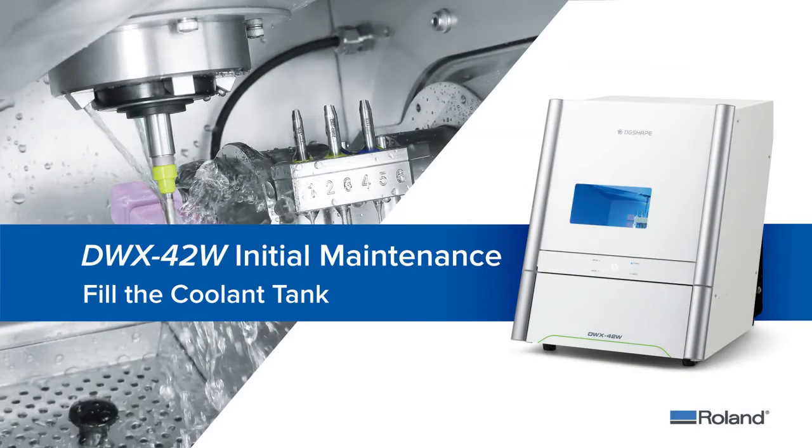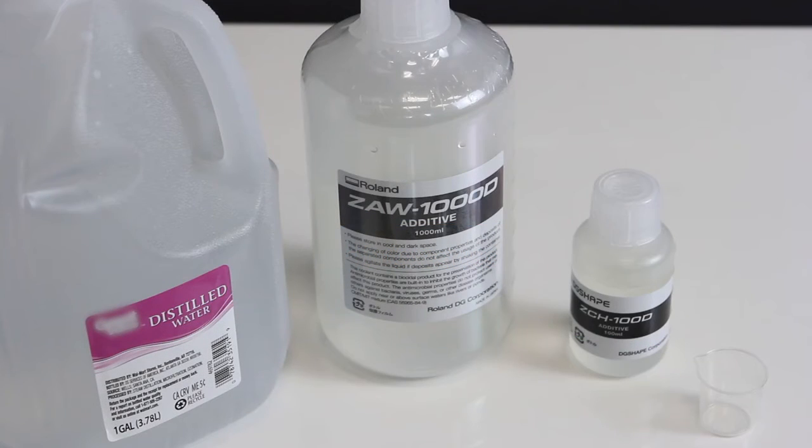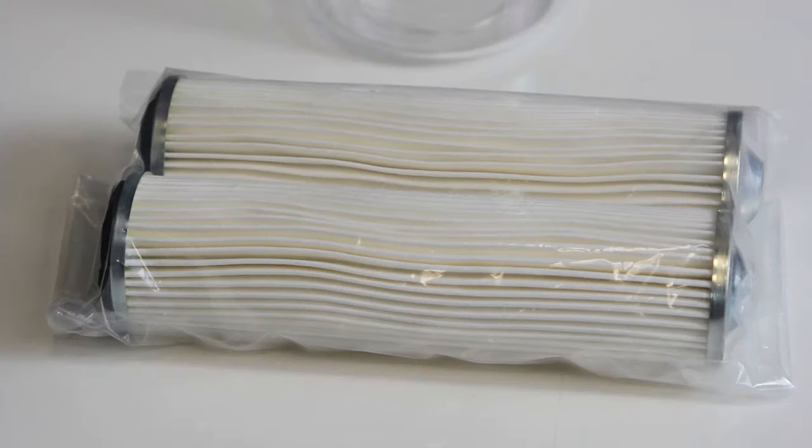This video will walk you through the steps to fill the coolant tank for your DWX-42W wet dental mill. To complete this step, you will need distilled water, coolant additive, chelate agent, and two coolant filters.